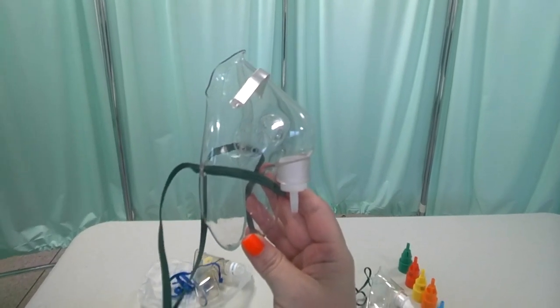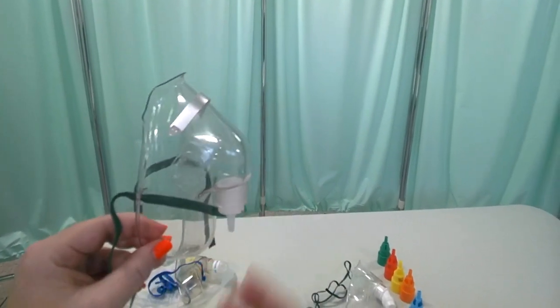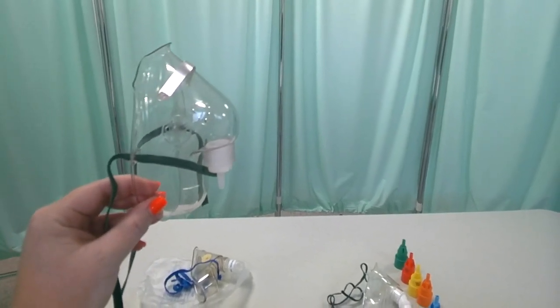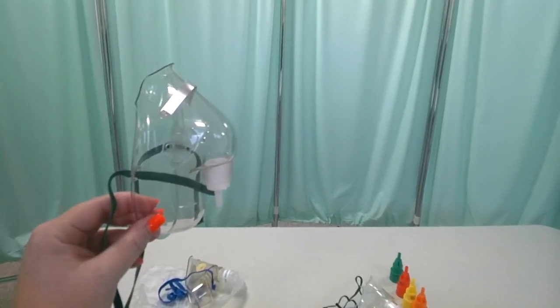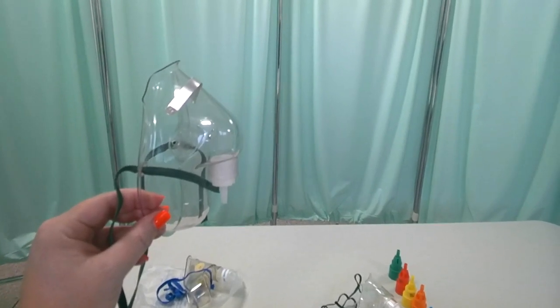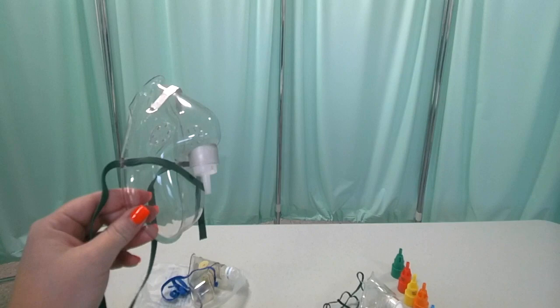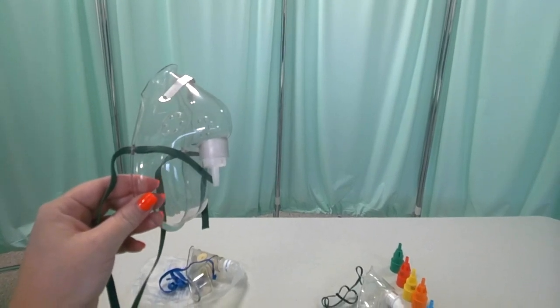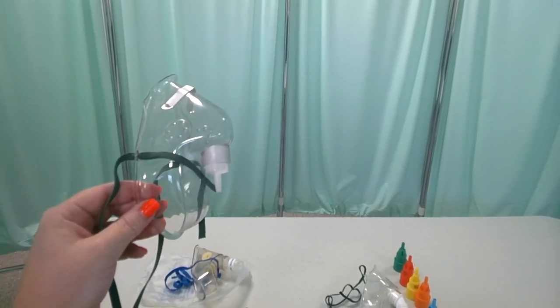At the upper end of the range of flow rates for this device, you don't generally want to use it at above 10 liters per minute. At 10 liters of flow, this device is going to give your patient about a 60% concentration of oxygen — around three times that of room air.